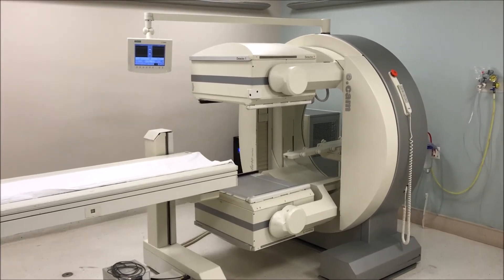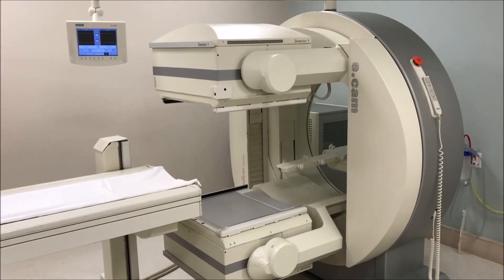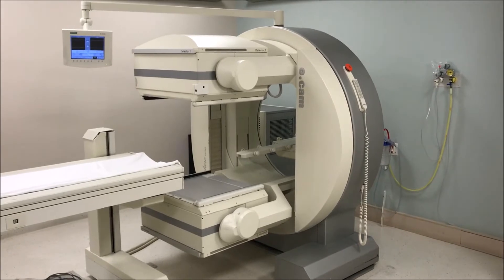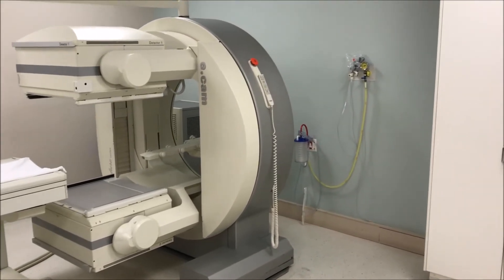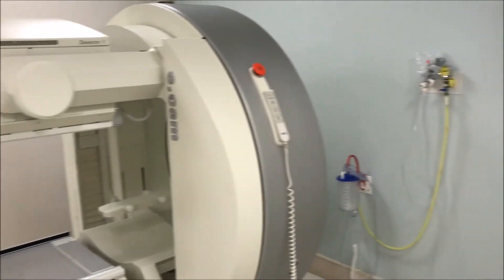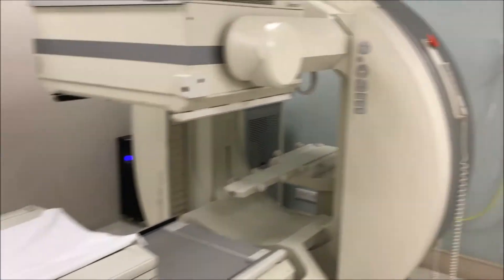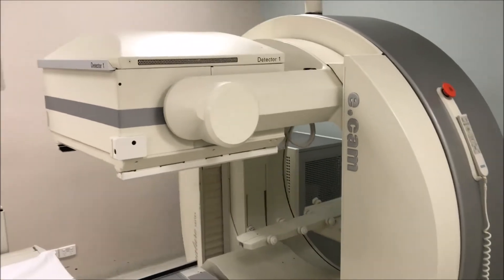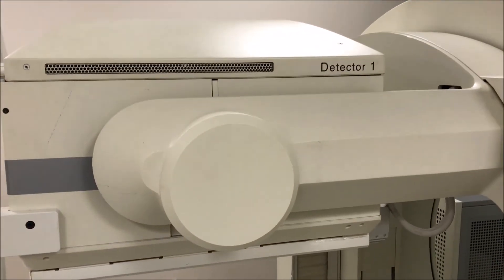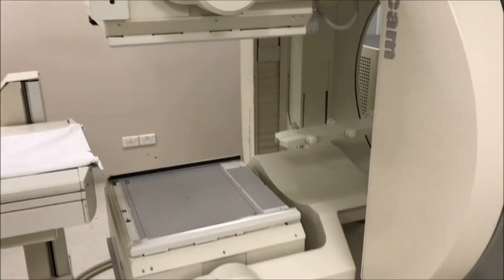The next generation after the Picker is this Siemens ECAM system. As opposed to the Picker, there are two detectors — one above and below the bed — in a slightly different configuration where the bed now moves through the gantry. It's still a fairly compact footprint; it doesn't go all the way through to the walls. The detectors are set up on the front end of the gantry so the bed doesn't have to go too far through. Two heads — one on top, one on the bottom — with the bed moving through. We've got a solid gantry that rotates for SPECT without any issues. The head is part of a single solid gantry rather than out on an arm that wobbles around like the old GE system.